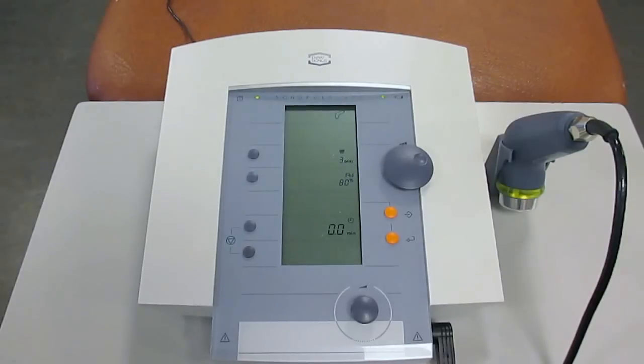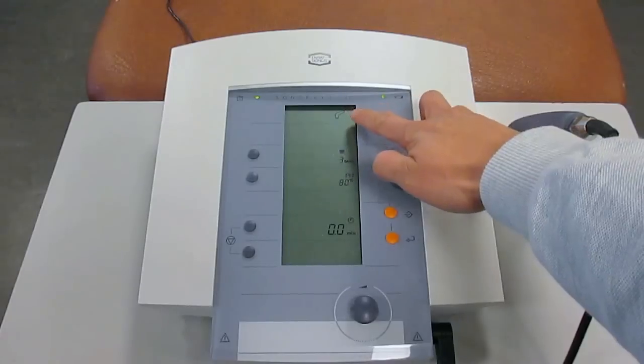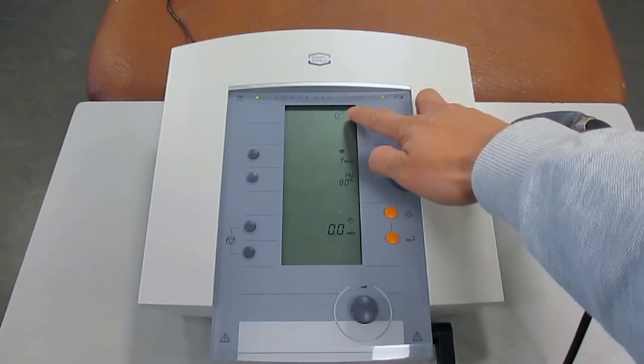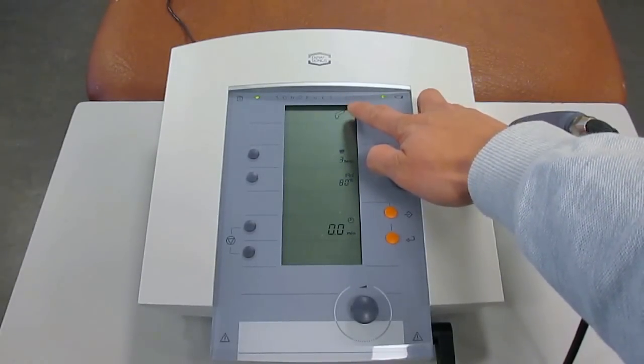You have to wait for it for about a few seconds before it initializes, and when it is ready for you to use, there will be an ultrasound symbol located at the top right-hand corner of the LCD screen.